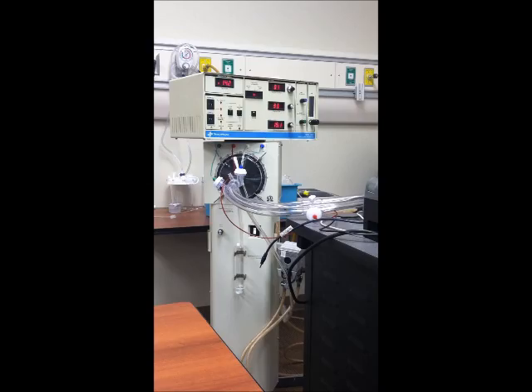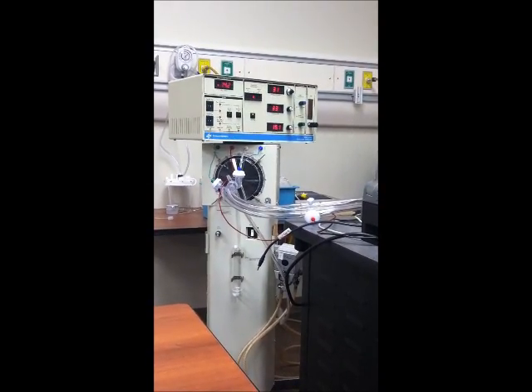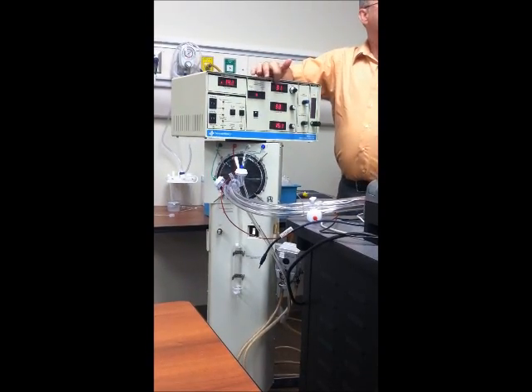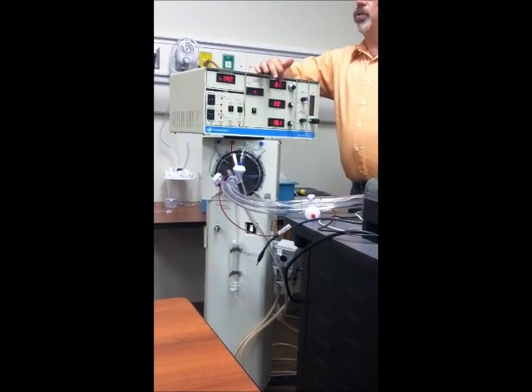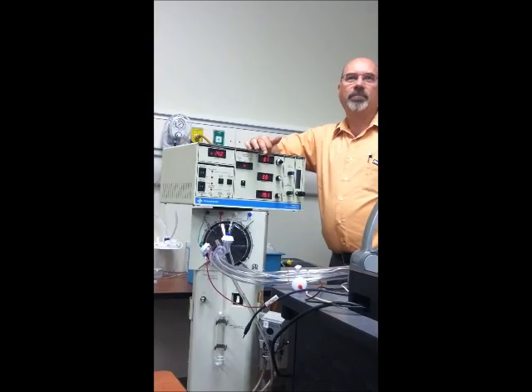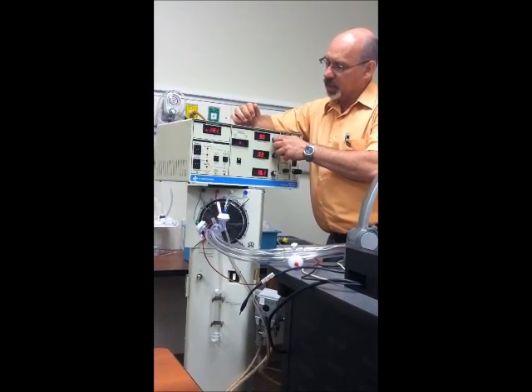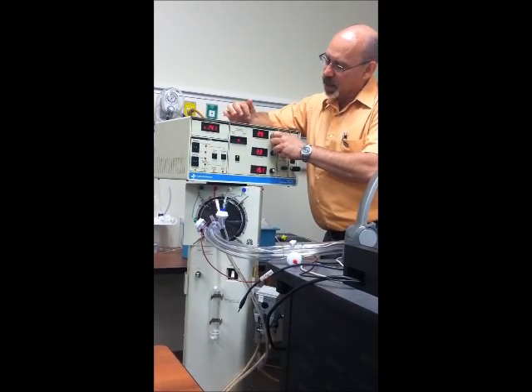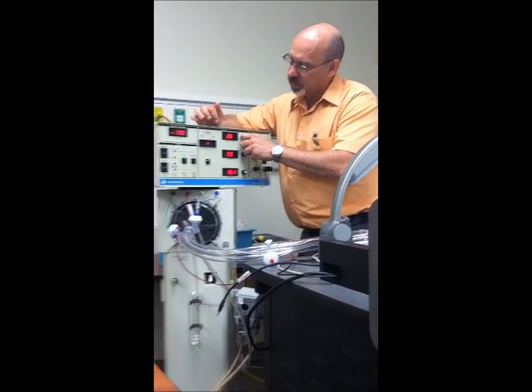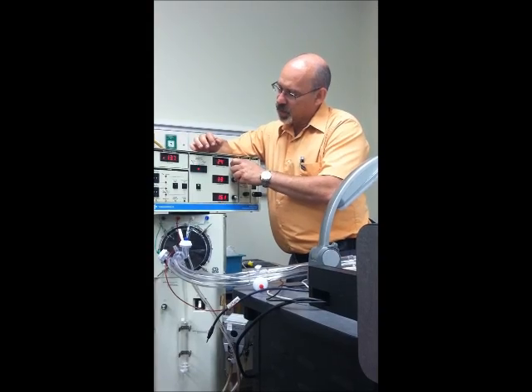Now, number 5 there, it says change delta P to 22. I tried to get both hospitals' philosophy in the check off. So now I want to change this 31 to 22. How am I going to do that? Which control? My power, right? So I need to go down in my power now, right? Instead of watching my power knob, I'm going to watch my amplitude. Guess our baby's doing better. What was it, 22?